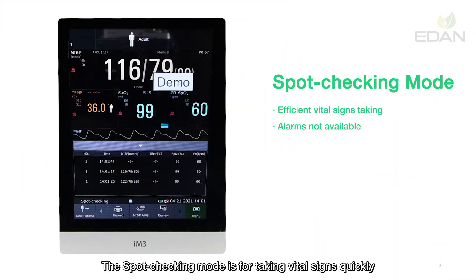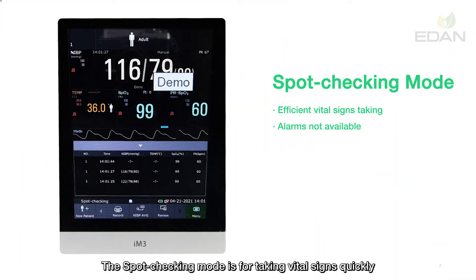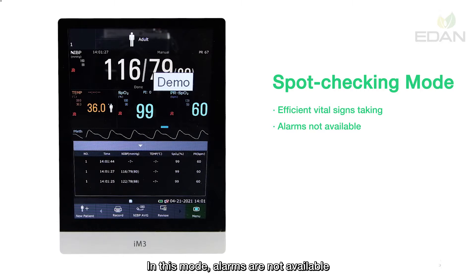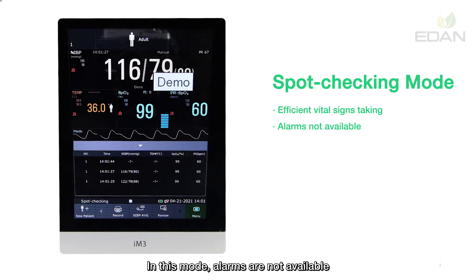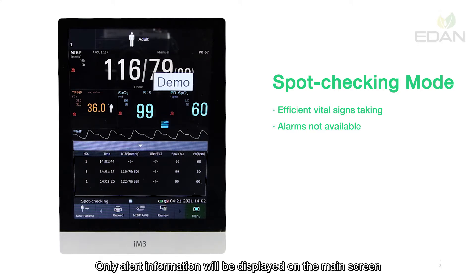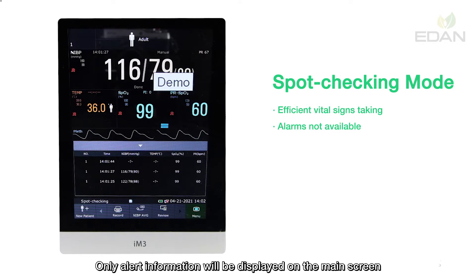The spot checking mode is for taking vital signs quickly. In this mode, alarms are not available. Only alert information will be displayed on the main screen.